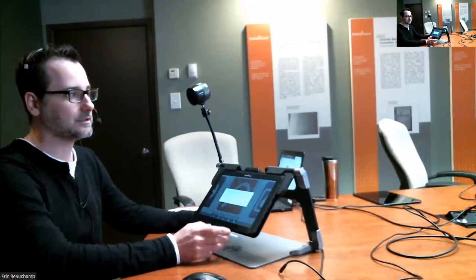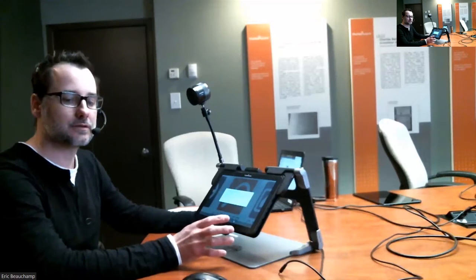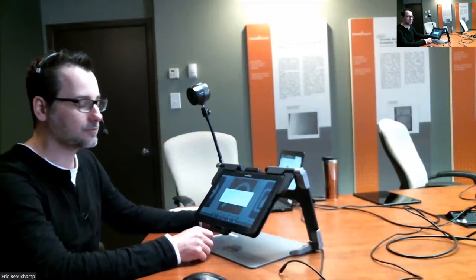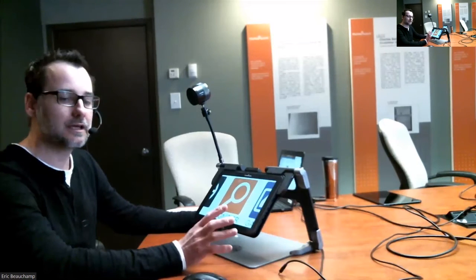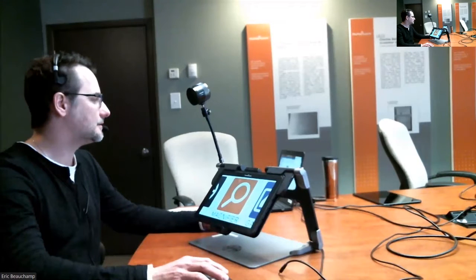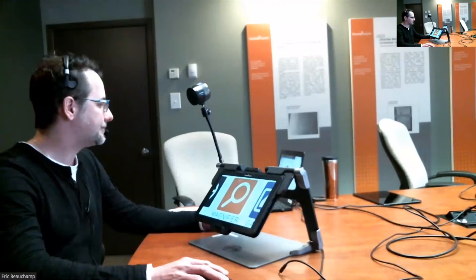Now, I have a little pop-up here that I intentionally produced so that you can see what's happening. This pop-up sometimes appears if you have reset the tablet, and it's going to say Prodigy Dock Event Receiver. If you have that, there's a little checkbox that you can check, and then you just say okay. It's never going to pop up again. This is really rare, but I just wanted to show you because this is a question that I see sometimes, so I like to answer it when I'm doing webinars or when I'm presenting.